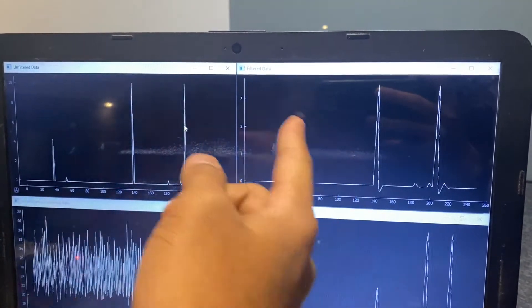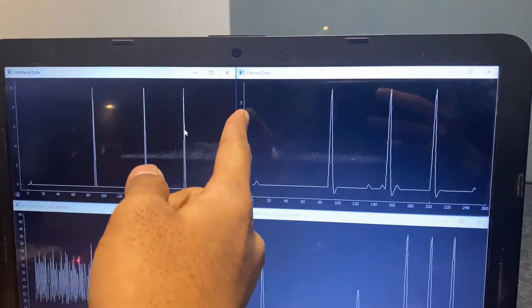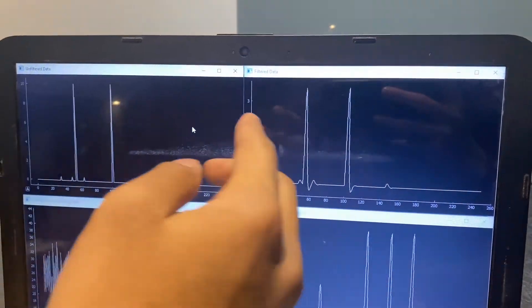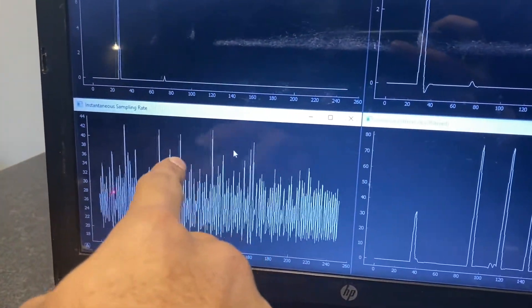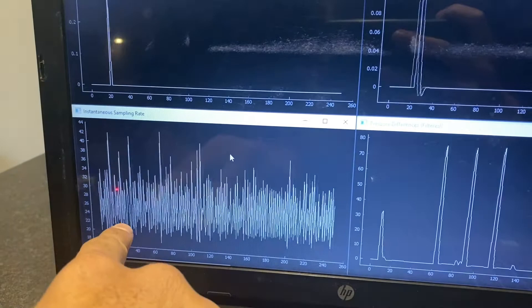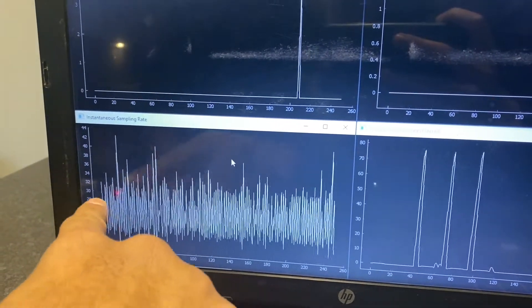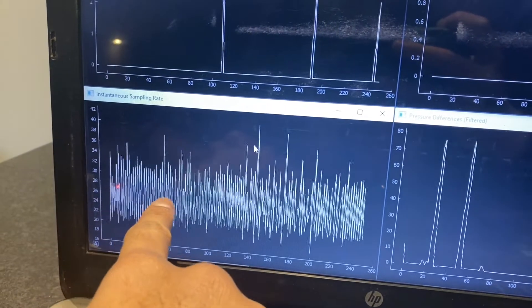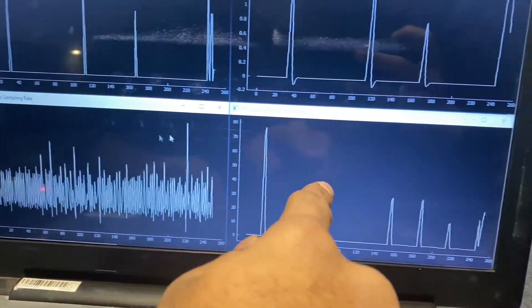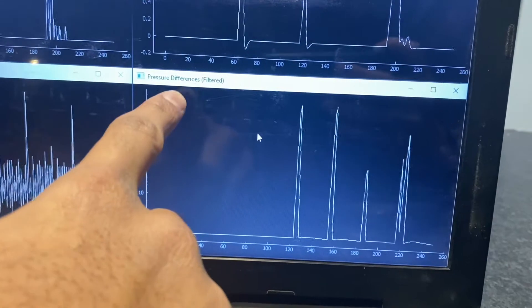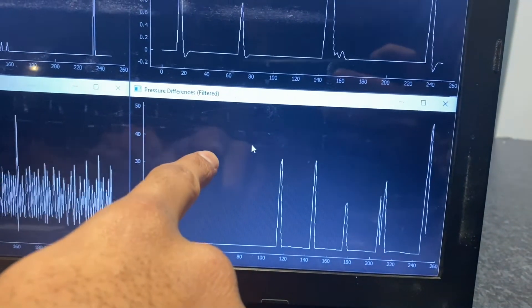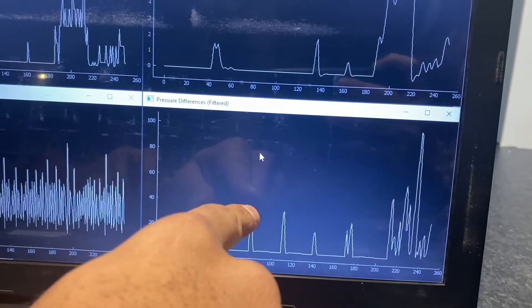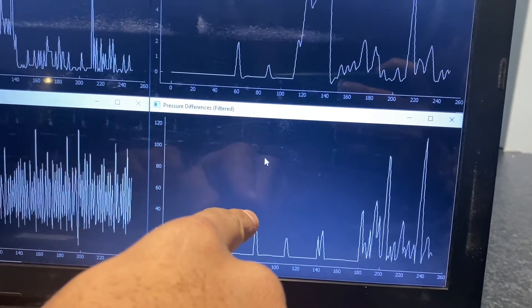The axes range from 0 to 3, and the noise and peaks visible are mainly due to sensor noise. The bottom window shows the instantaneous sample rate, oscillating around 25 Hz, which matches our chosen sampling rate of 25 Hz. The fourth window displays pressure differences between two successive blood pressure readings, which are then filtered via a bandpass IIR filter, all processing done in real time.